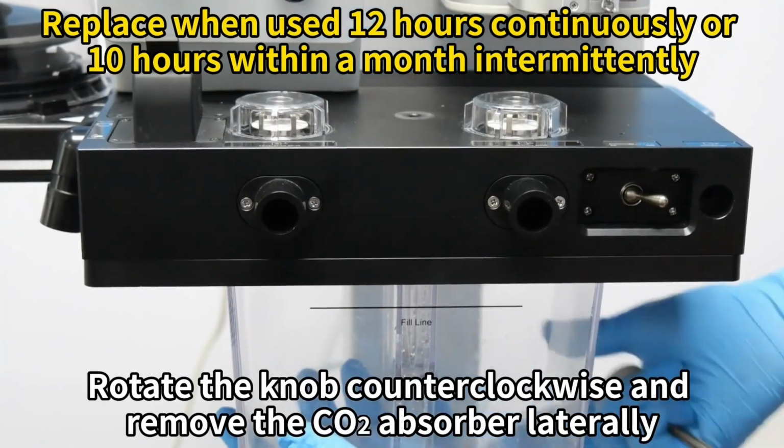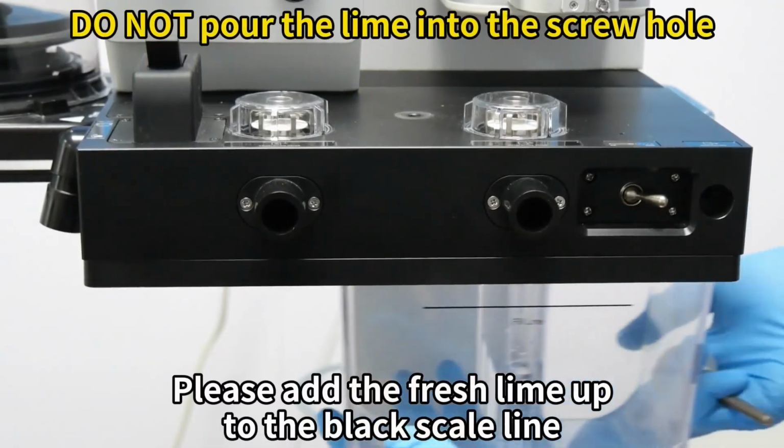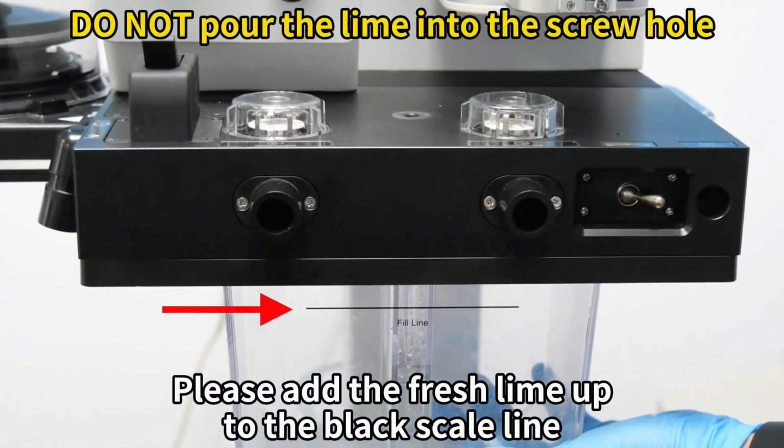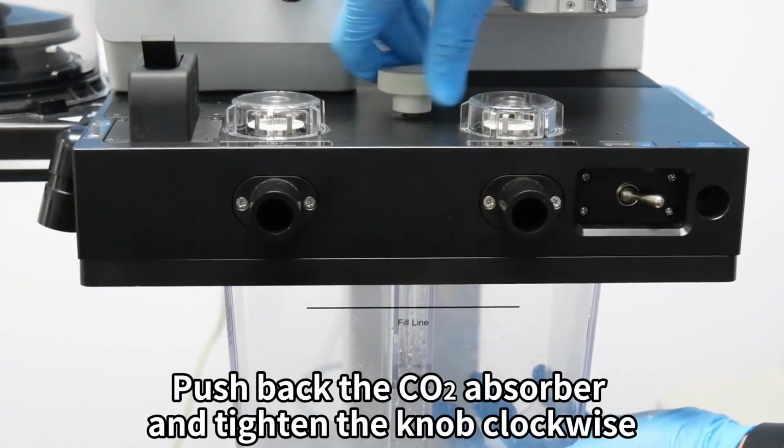Replace when used 12 hours continuously or 10 hours within a month intermittently. Do not pour the lime into the screw hole. Please add the fresh lime up to the black scale line. Push back the carbon dioxide absorber and tighten the knob clockwise.